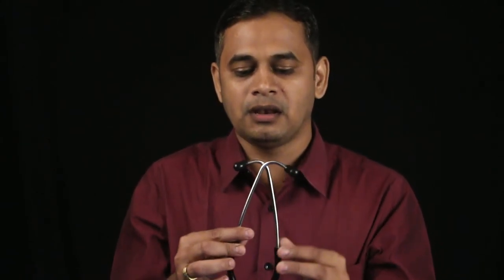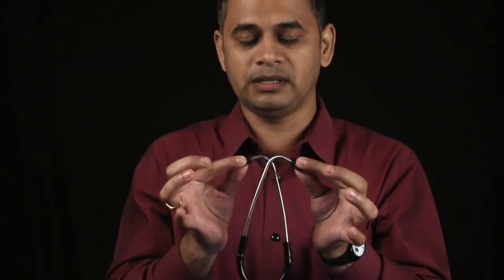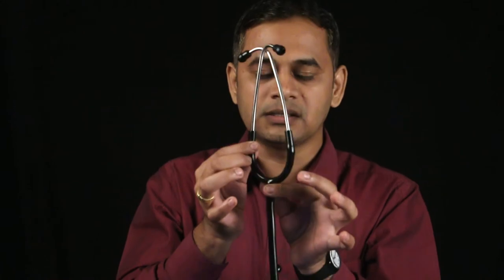Now let me explain the parts of the stethoscope. This is how we hold the stethoscope for keeping inside the ear — held in this way, we can listen to breath sounds and heart sounds clearly. The ear plugs or earbuds, the binaural connector, the rubber tubing, and the entire chest piece — this part is called the bell, and this part is called the diaphragm. There is also a closer valve, which allows you to switch between the diaphragm and the bell so that only one works at a time.